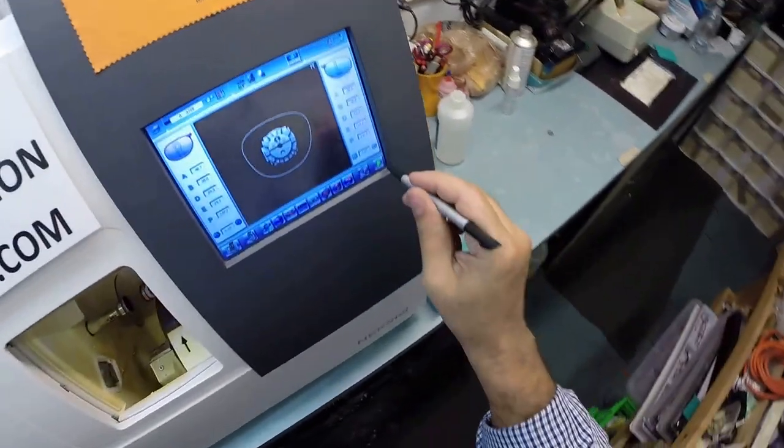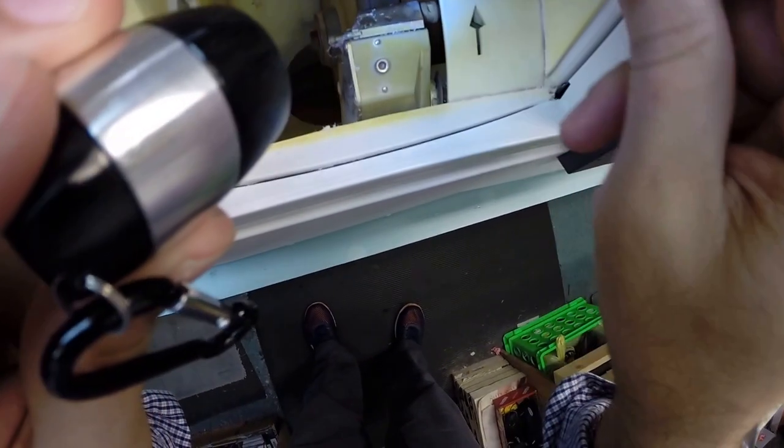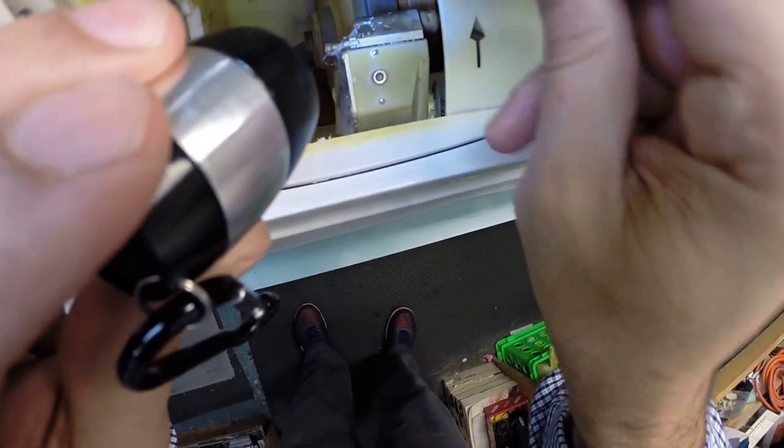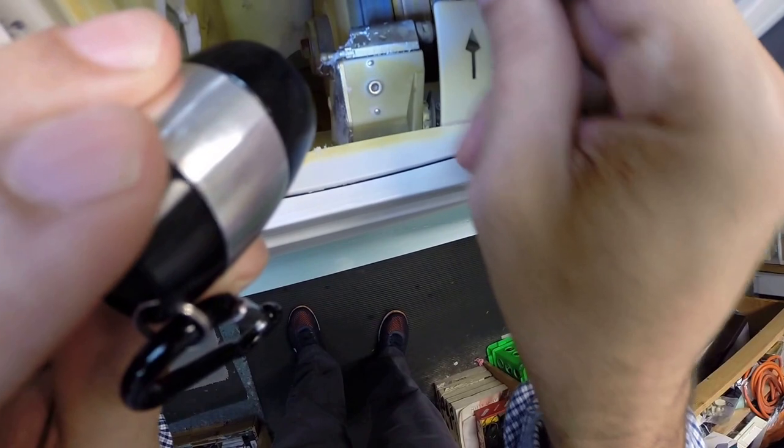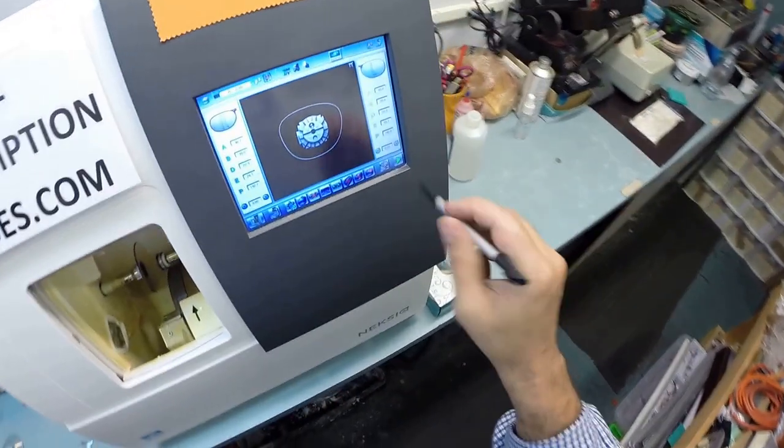I only want to put a safety bevel on the rear concave surface of the lens. And that concludes your vocabulary lesson of the day. So the actual cutting wheel is over here on the far right. It's gonna act like a heavy grit sandpaper to grind the lens down to its final shape. That wheel in the center is what's gonna put the bevel onto the lens so it stays inside the bevel of the frame. So I'm gonna hit the green arrow which is start in every language.